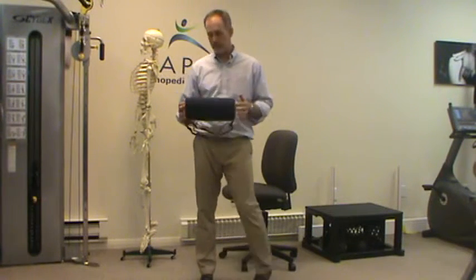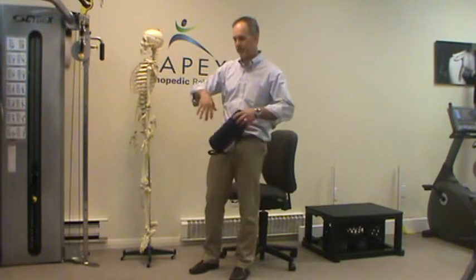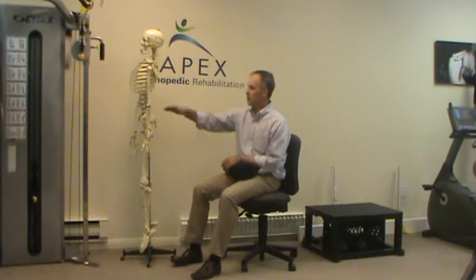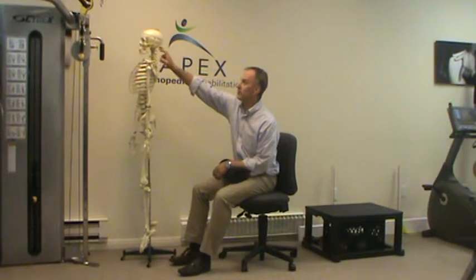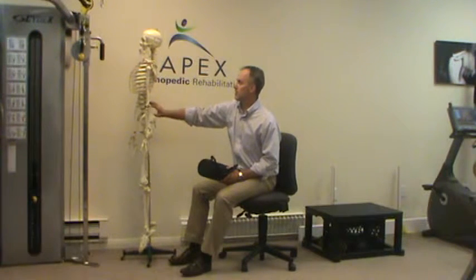What does this do? Basically, what tends to happen in sitting is we have a normal curve in the lower lumbar spine — this little indent right here. When we sit, it tends to flatten and we lose that natural curve. I tell my patients we're just trying to get everything to stack evenly. Most people kind of slump forward and lose that natural curve. Also, when you lose that curve down here, you kind of lose the curve up there. So a lot of times I'll give a lumbar roll to patients with neck problems — let's get this roll positioned right down here because it's going to get everything to stack better up there.